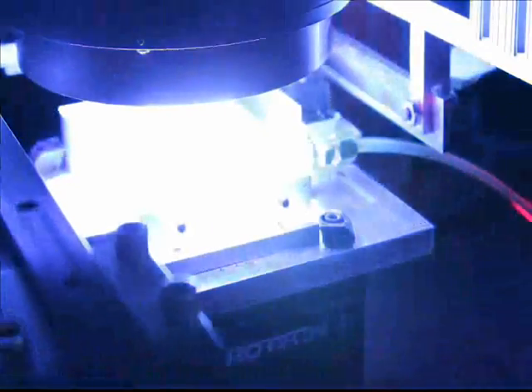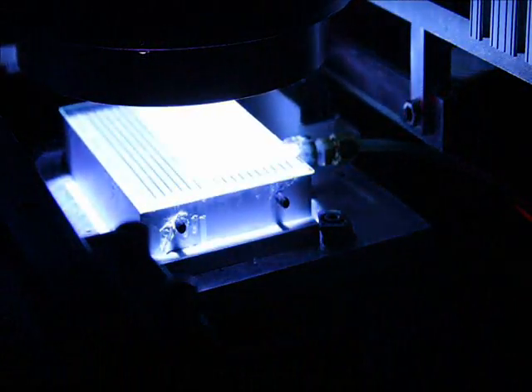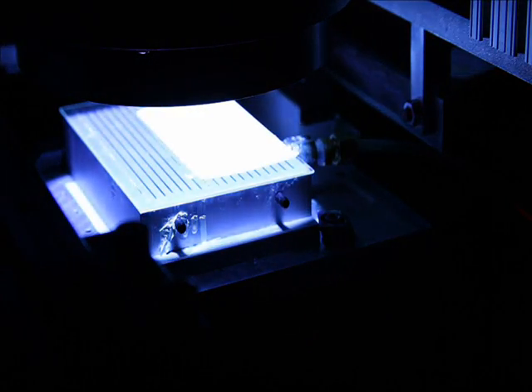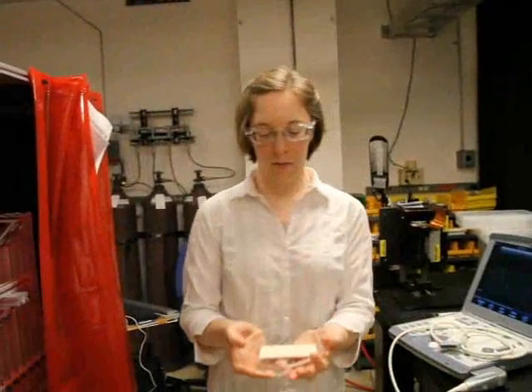First, we dispense a ceramic-based slurry and spread it to a very precise thickness. We then expose a pattern in UV light, curing a transducer shape, eliminating the need for dicing.